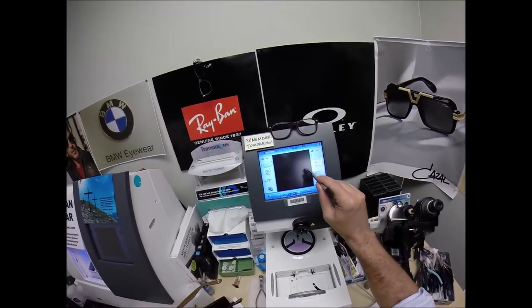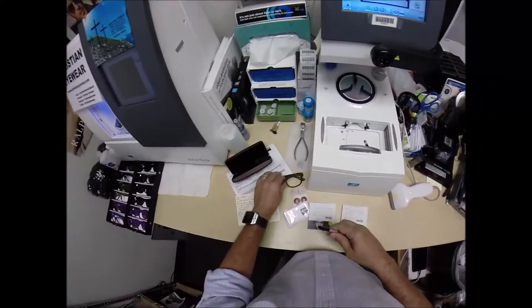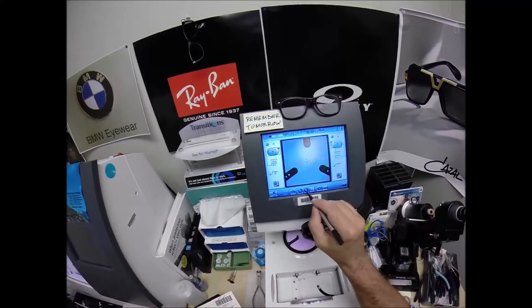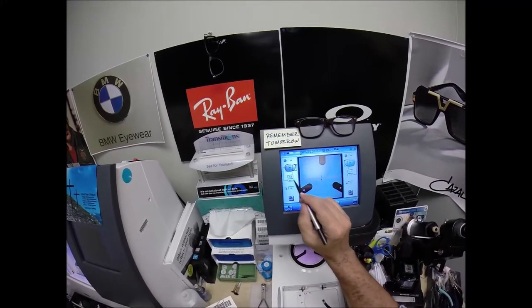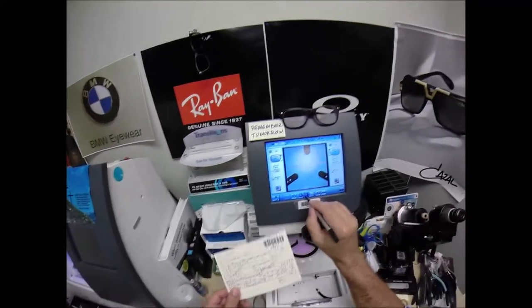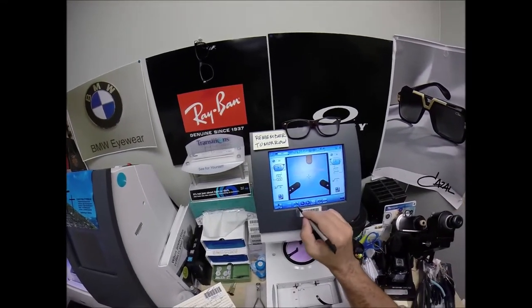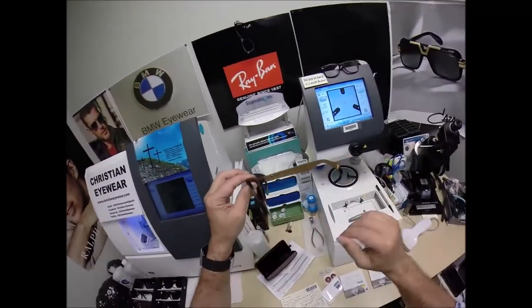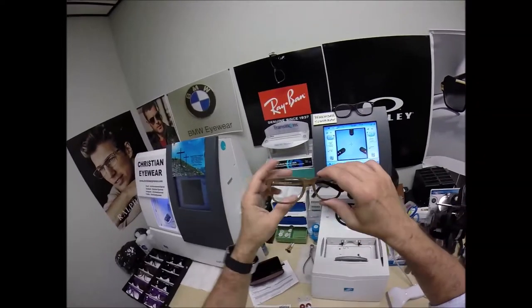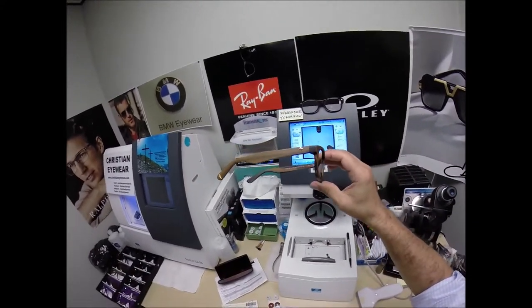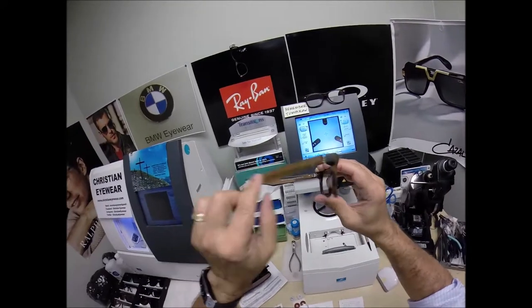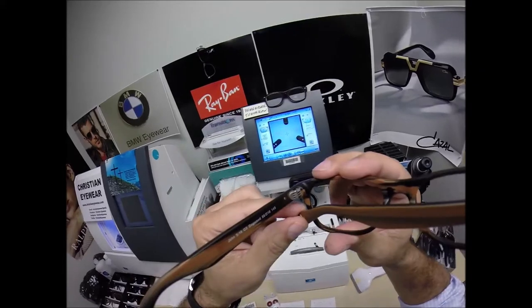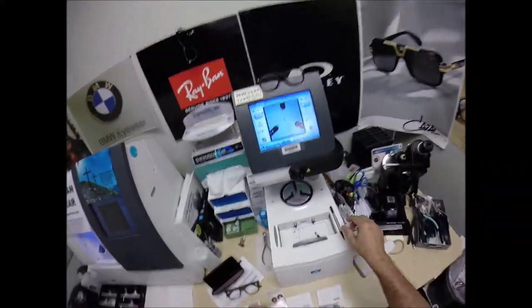So I'm going to move on to the next screen, which is the shape that I'll be cutting. I'll need to enter your pupillary distance, which is 36 for each eye. The computer starts at 32.5. I'm going to tap the plus button until we get to 36. I want to raise the optical center up to 27, which is what I've done his previous glasses for. For his previous Ray-Ban 2132 new Wayfarer in size 55, of which this is influenced by, except it does not say Ray-Ban on the inside. It says the John 316. The Ray-Ban has a three-barrel hinge. The Christian eyewear all have a seven-barrel hinge, making it incredibly strong.